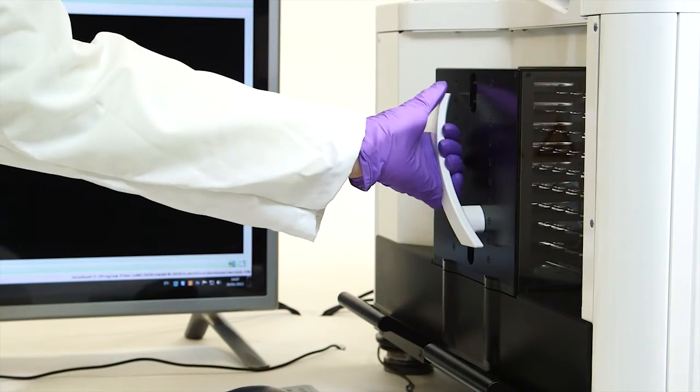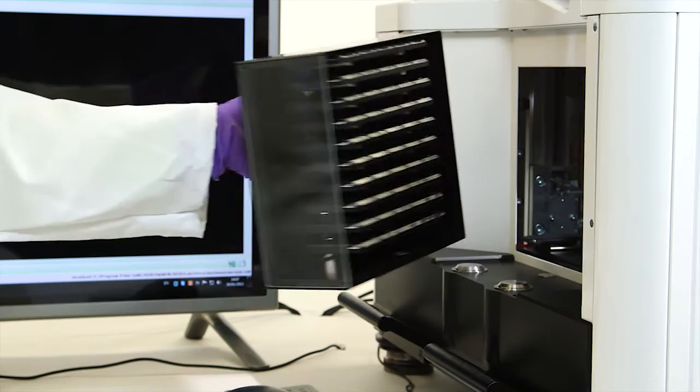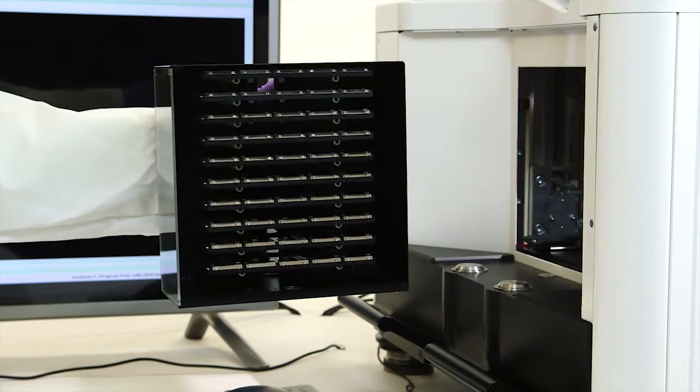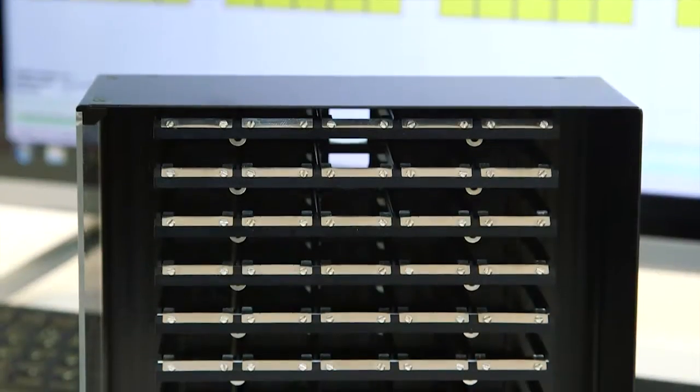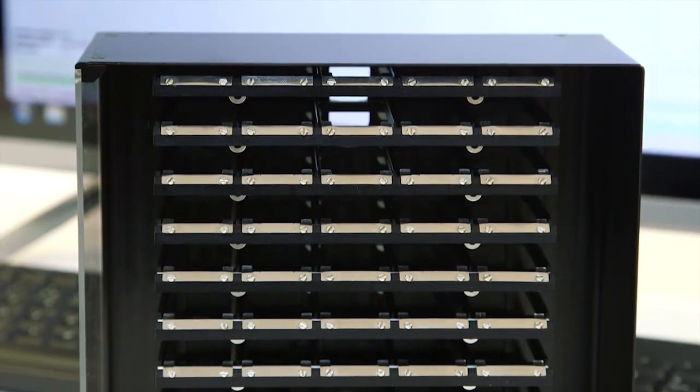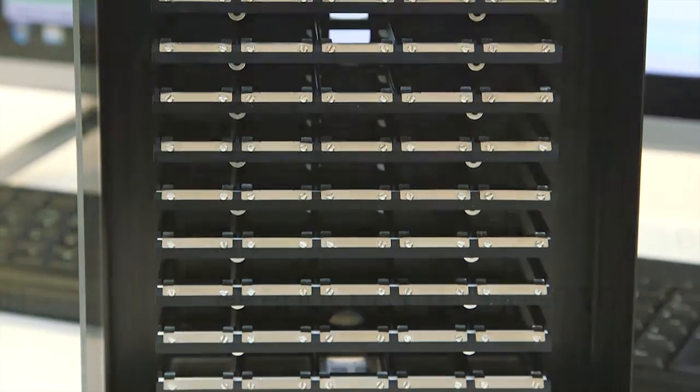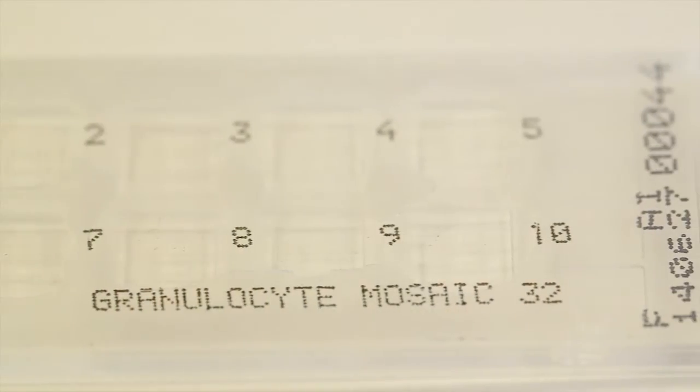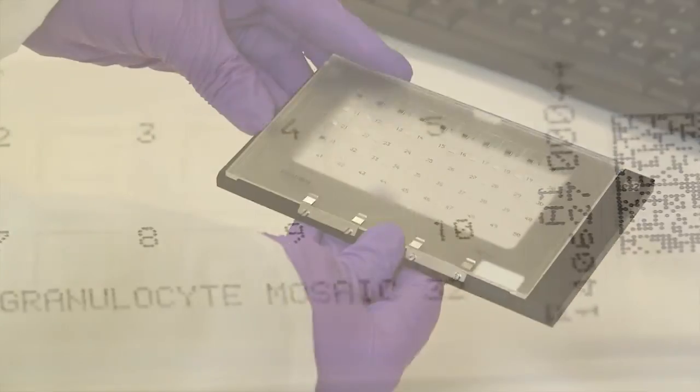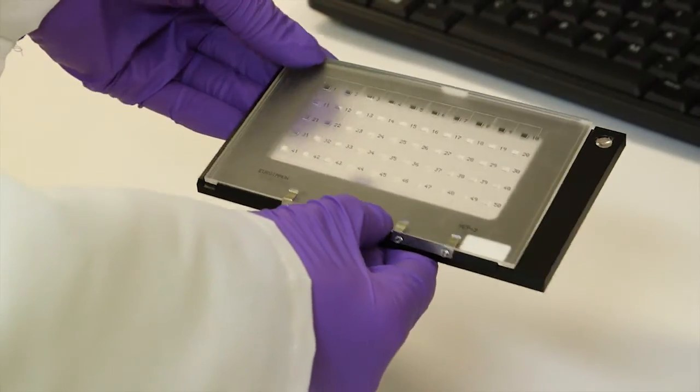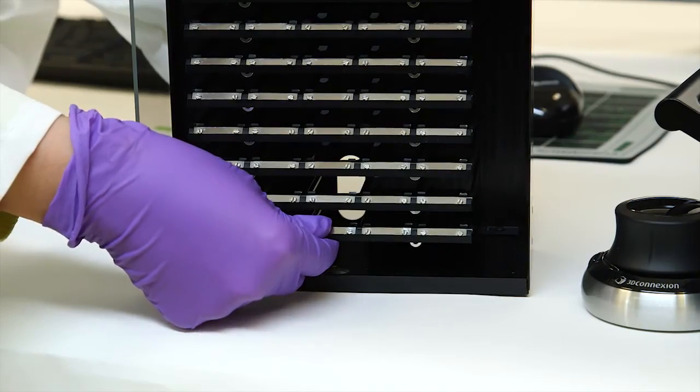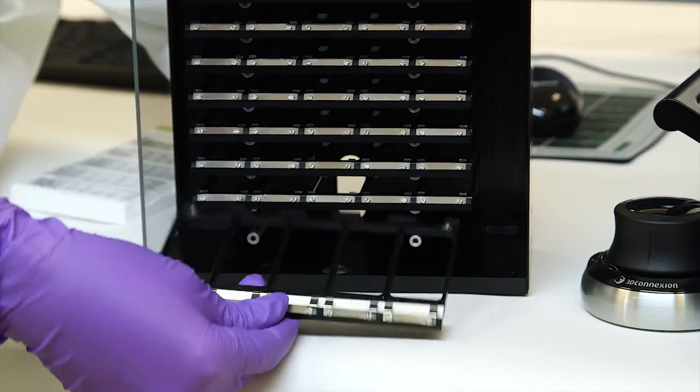Next, simply load the magazine with slides bottom to top. Each carrier cartridge in the magazine can be equipped with five five-well slides, five ten-well slides, or one 50-well slide. The total magazine capacity is 500 wells.